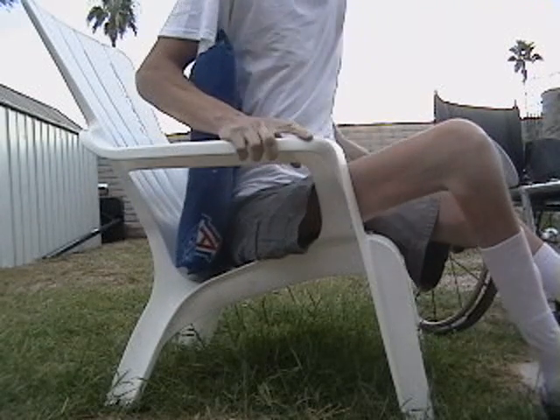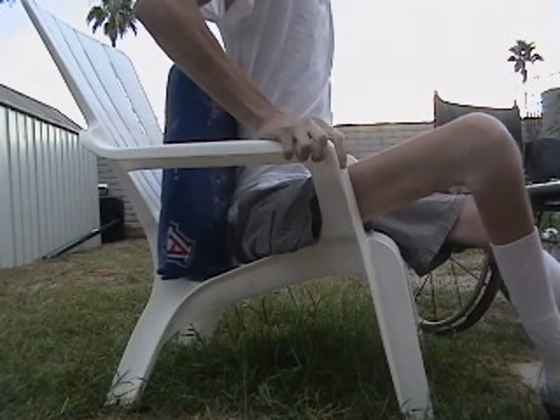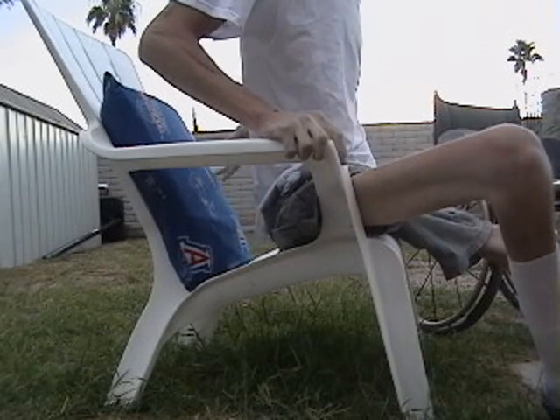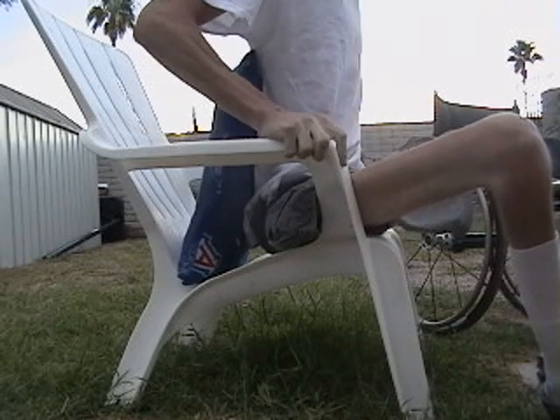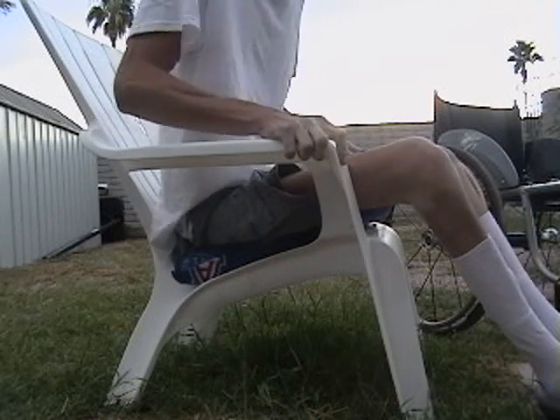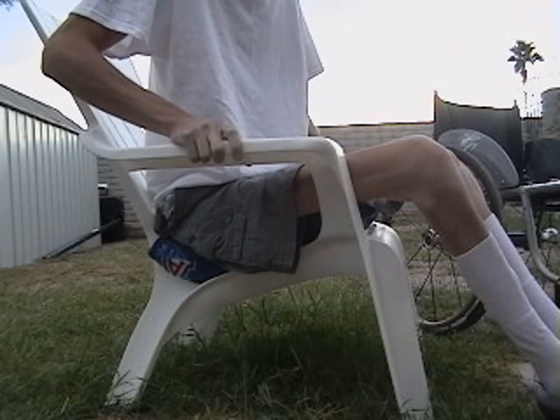What I'm going to do here is try to angle the cushion so that whenever I lift up, it just naturally falls into place like that. And that's a little trick — a nice thing that I found that works pretty good.